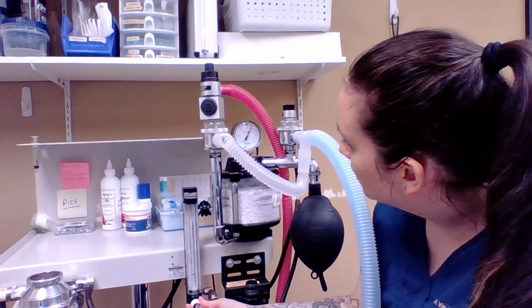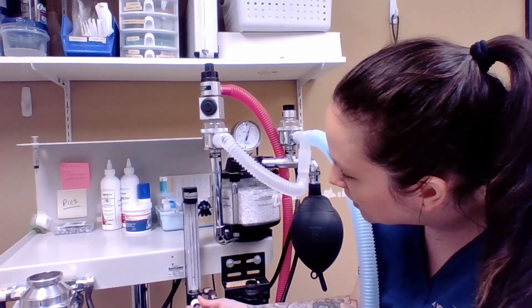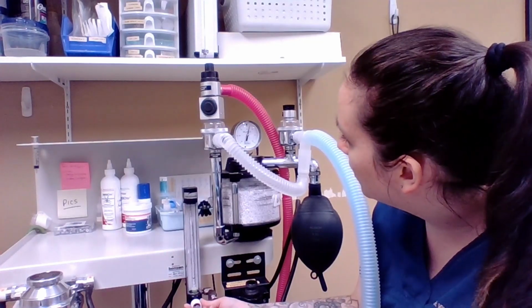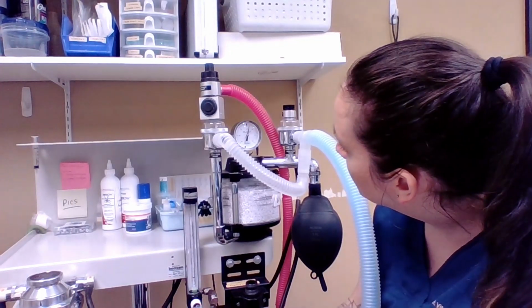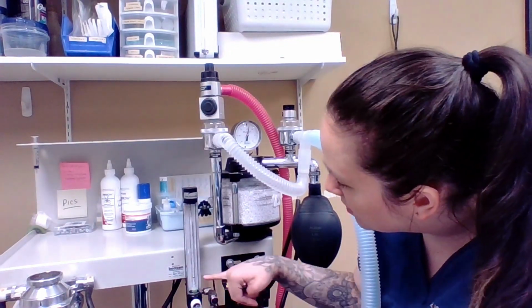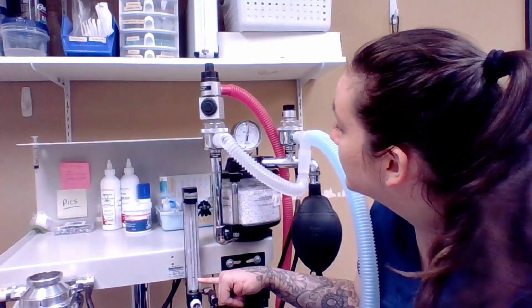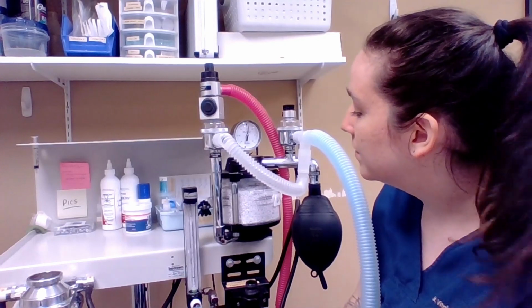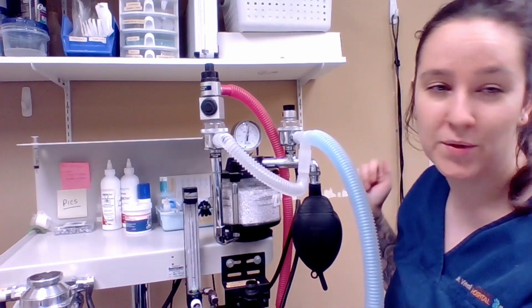So in order to calculate the volume of my leak, you just turn the oxygen back on to where it holds steady. So I'm calculating that at about a 450 to 500 mL leak. That is where my needle's holding steady. So I'm going to have to check into that to figure out where the leak's coming from.